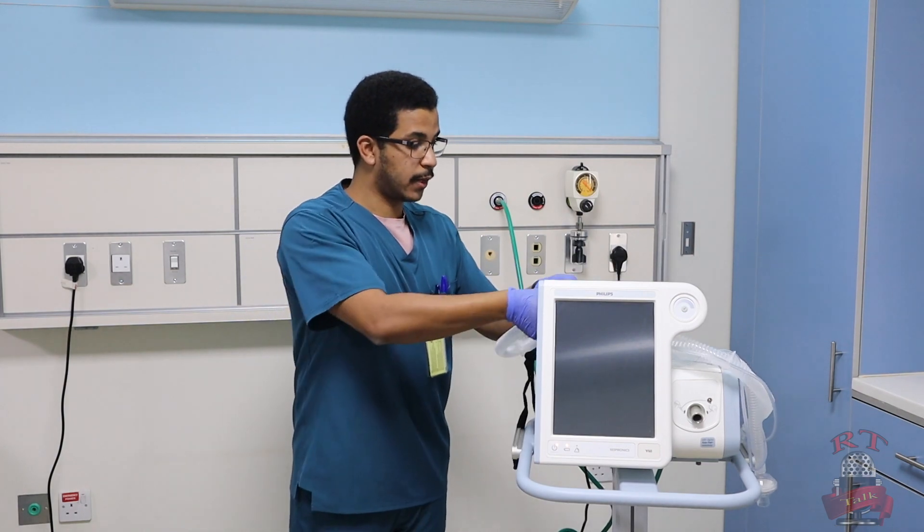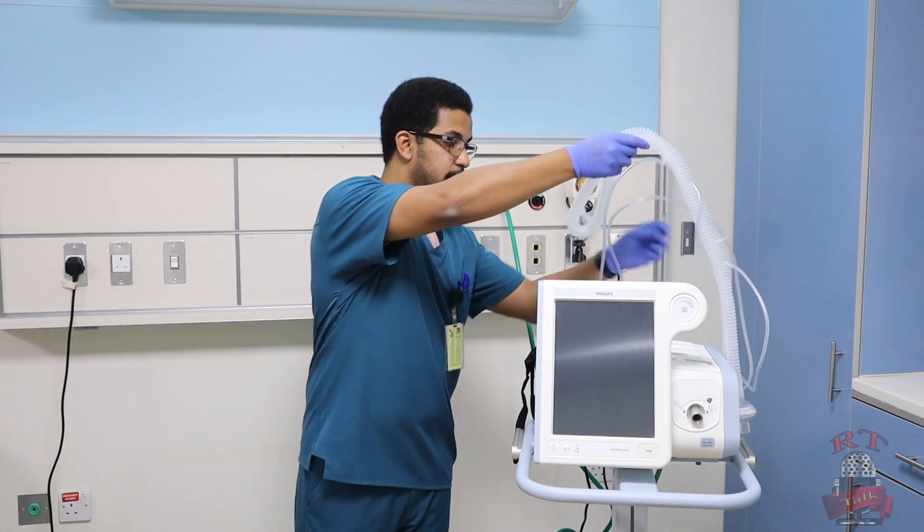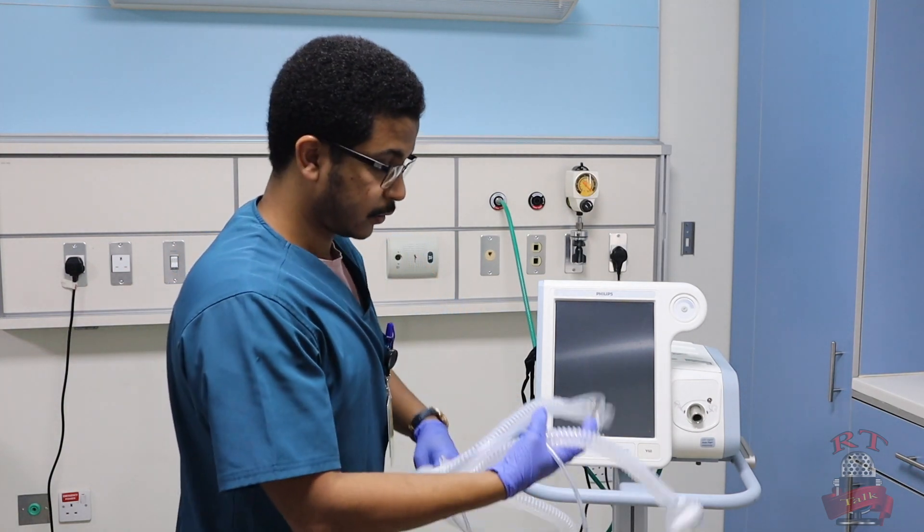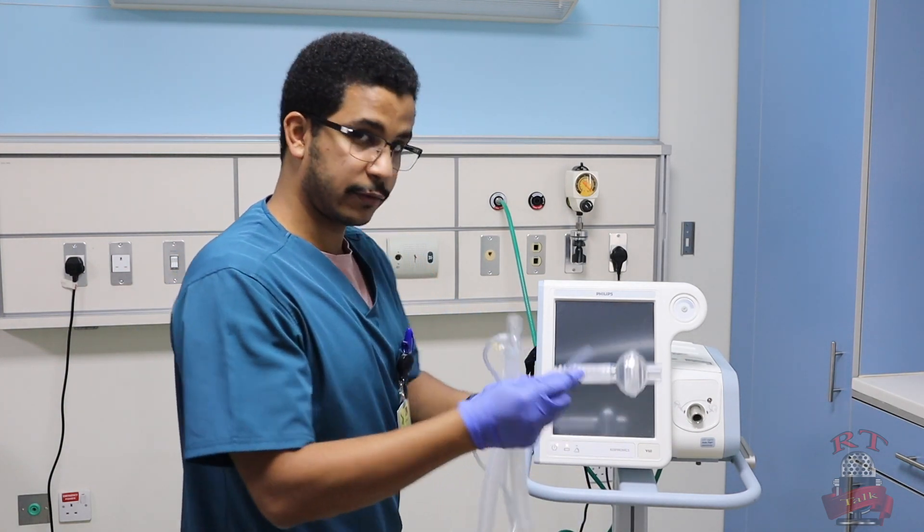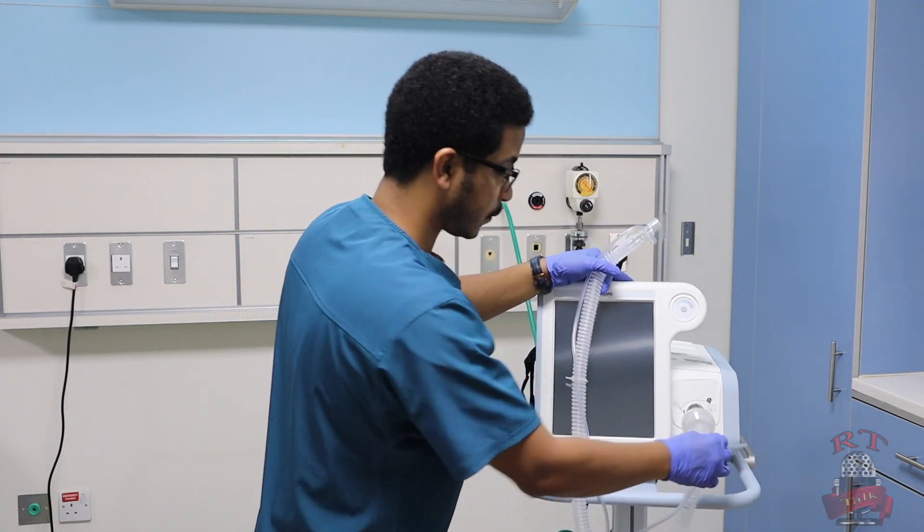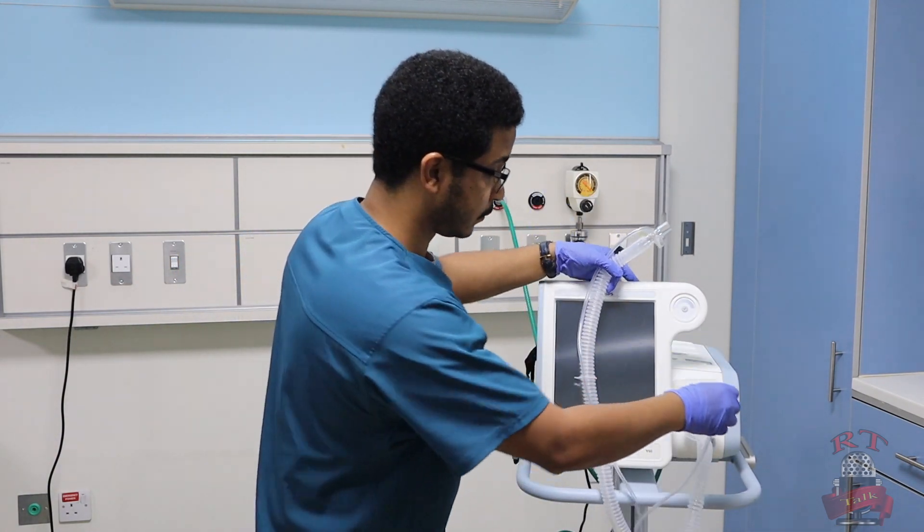Number three, I will take now my BiPAP circuit and connect it. We go here. We have two lines: one, and this is the second line.